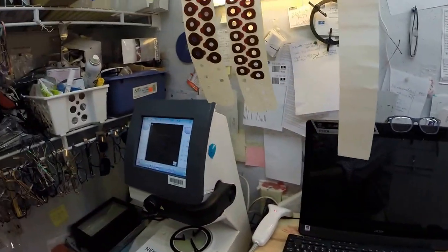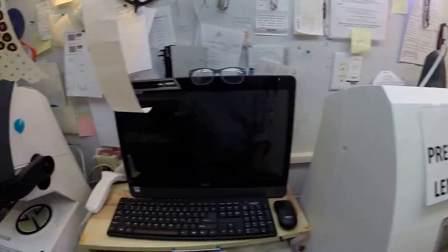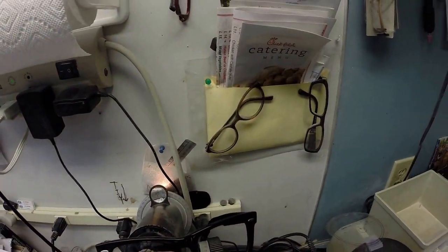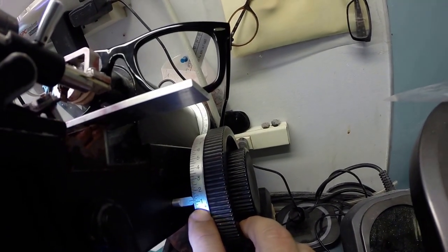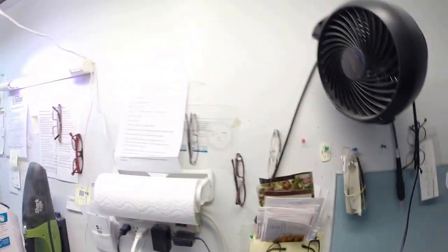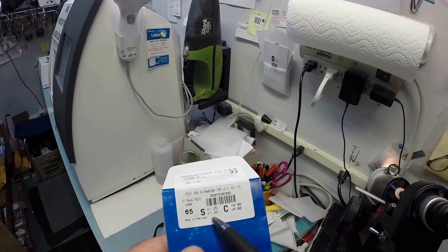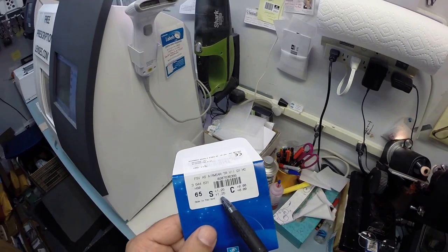Now, this is done. Let me put that stylus back. I'm going to take the block off, pull the sticker off. It is no longer needed. And I'm going to go down to my Marco 101 lensometer, put it in right above that red dot. And I am going to read the power of plus one and a quarter. We're at 0.25, 0.50, 0.75, 1, 1 and a quarter. Now, the unit of measurement we use in the optical world is called a diopter. And it starts at zero and goes up from there. Again, 0.25, 0.50, 0.75, 1, 1 and a quarter, and so on.